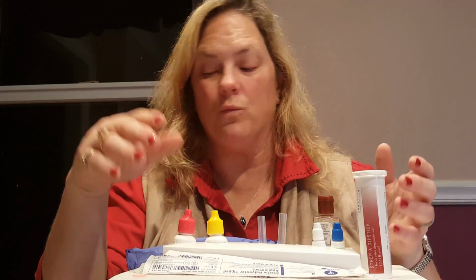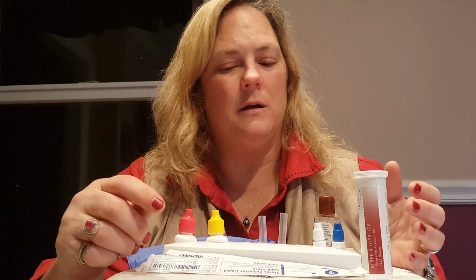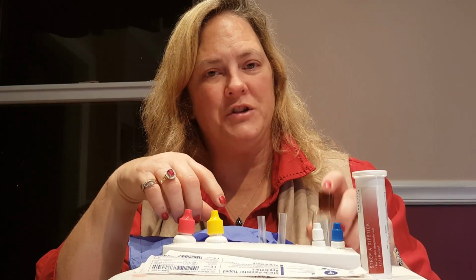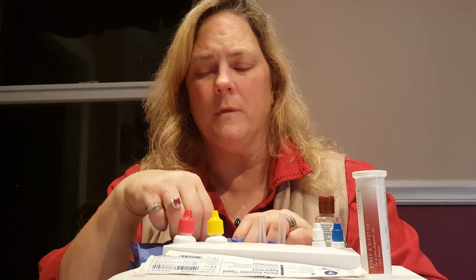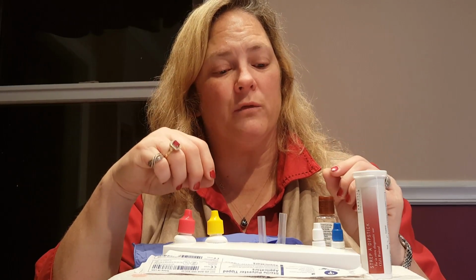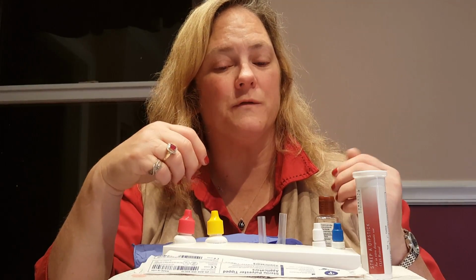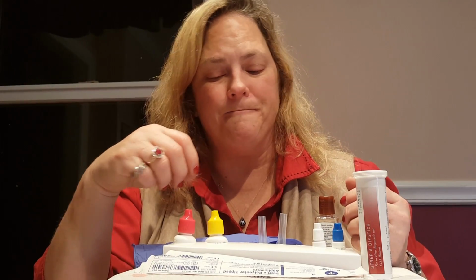You will perform the testing in the lab. When you're doing the testing, you want to be sure that you're wearing gloves, and that you've performed hand hygiene before using the gloves. You also should be wearing a mask, because you will be within 3 feet of the patient in their personal space and susceptible to droplets from the patient.